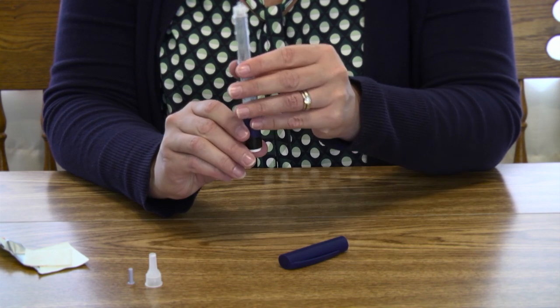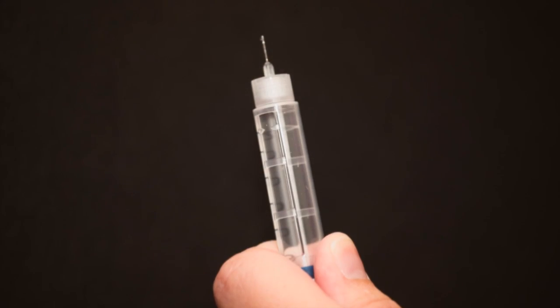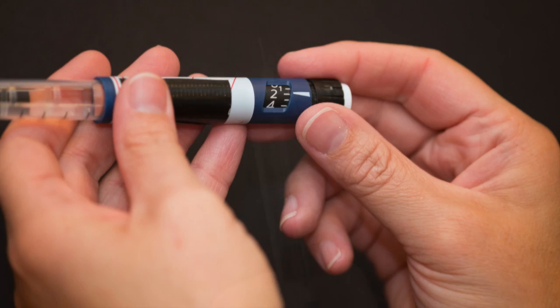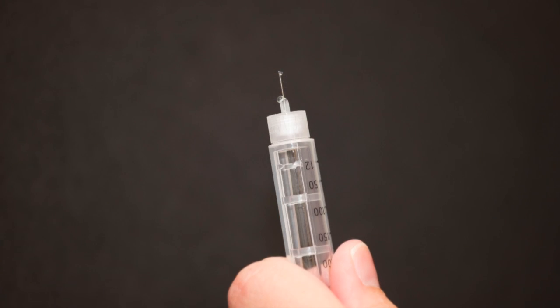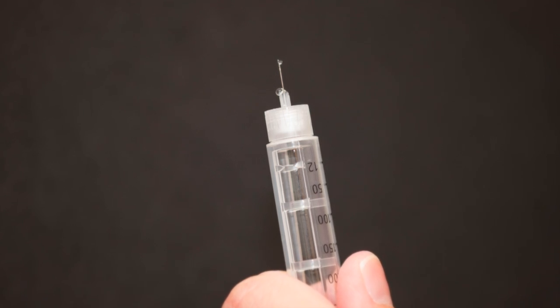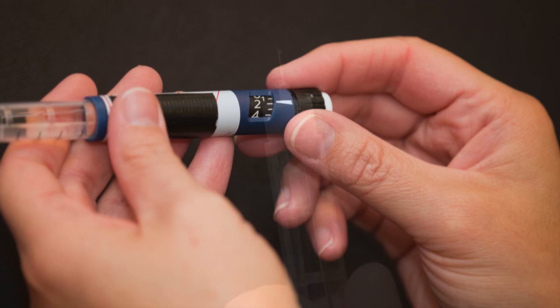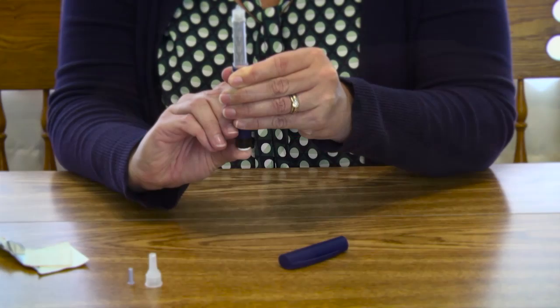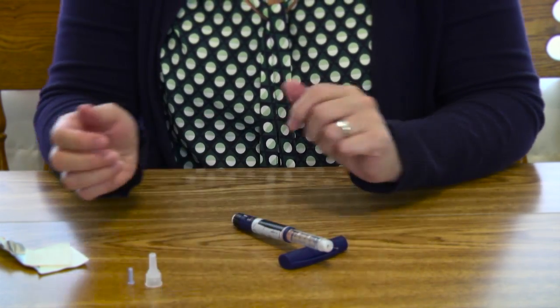Prime the insulin pen. The pen must be primed before each injection. Priming means removing air bubbles from the needle and ensures that the needle is open and working. To prime the insulin pen, turn the dosage knob to two units. With the pen pointing upward, push the knob all the way — at least one drop of insulin should appear. You may need to repeat this step until a drop appears. Then select the dose of insulin prescribed for you by turning the dosage knob, check that the dose is correct, and set the pen down without letting the needle touch anything.